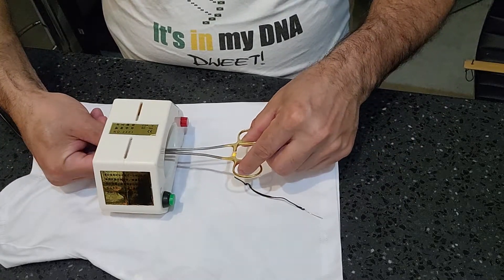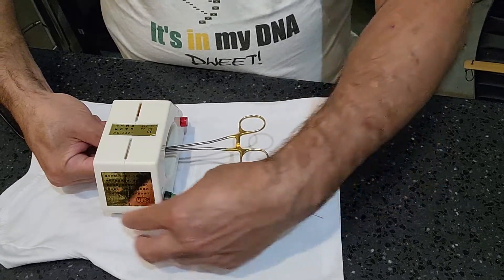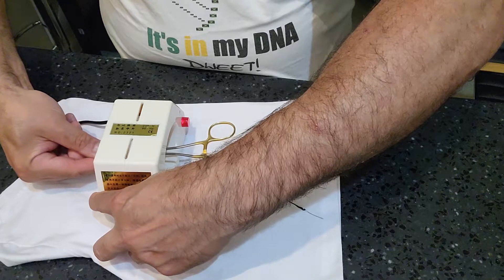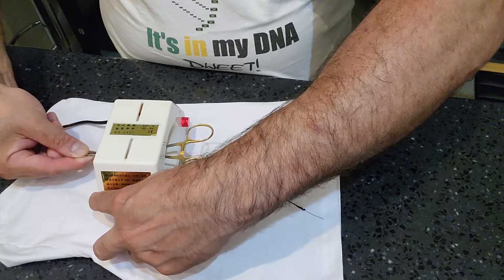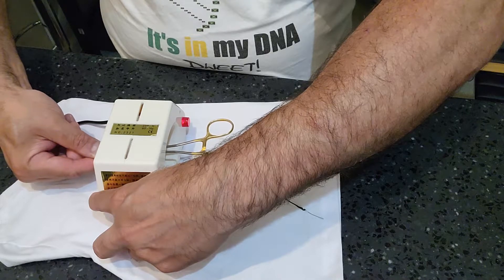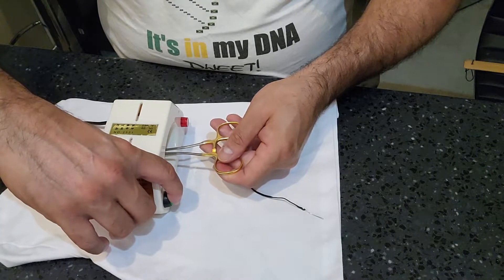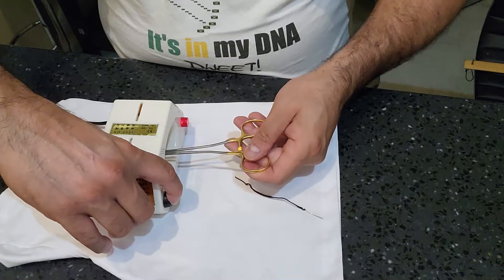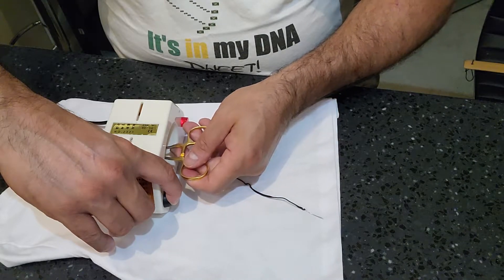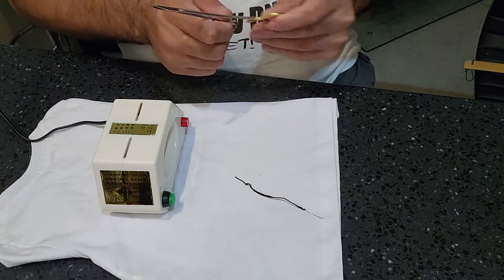Hold it in the middle. I'm going to hold the instrument with the tip of my finger here, then hold this button — it's going to hum — and move it without touching the side. The ones I've used in the medical field are a lot more powerful than this. The IFU says it has a one-minute demagnetizing time, after that the device heats up and shuts down. So if I did this correctly, this item should be demagnetized now.